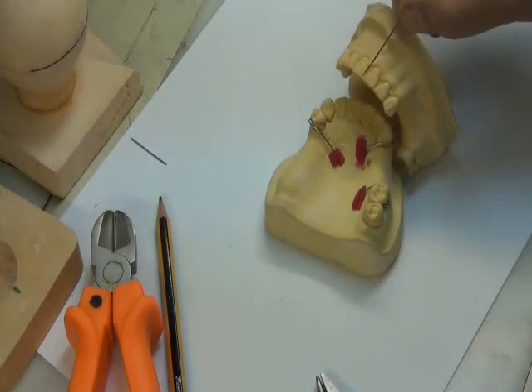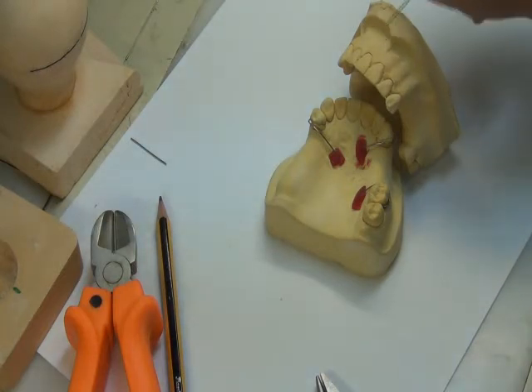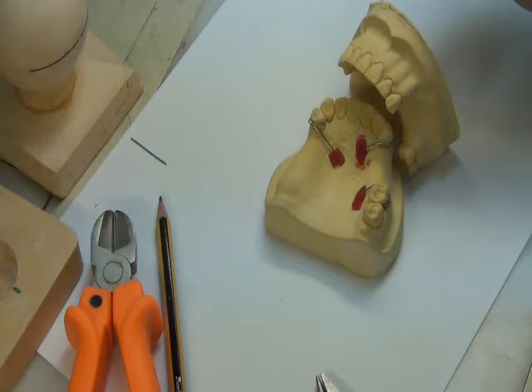Almost most of the distance is parallel, and then we have a wide neck for the teeth. We call these square teeth. If we have small teeth, a bit tapered, but also with round ends on the edges, we call this oval teeth. Okay? So we take the general form of the teeth from the teeth that we have.